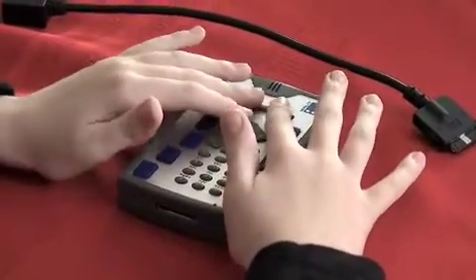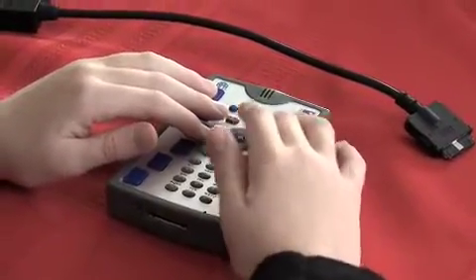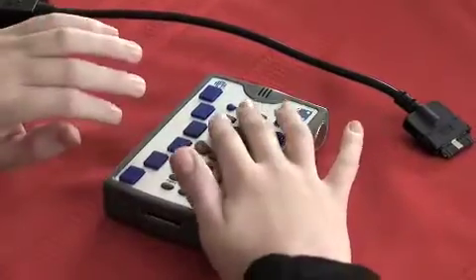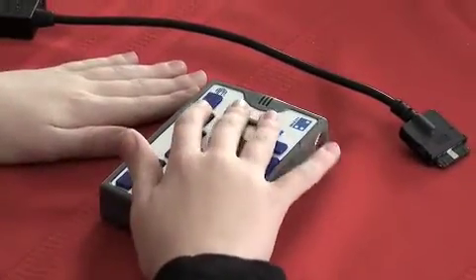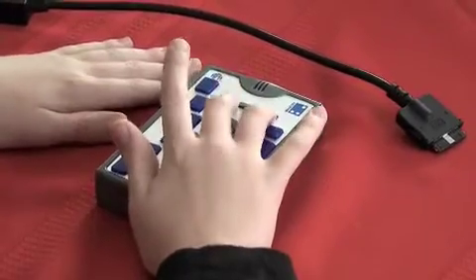If you hold Program 2, it will open the Wireless part of the Network Manager, and it'll search for Wireless Networks, and if you've been connected to one in the past, it'll automatically connect to it. And if the Wireless is on, you can hold Program 2 and it'll turn Wireless off.